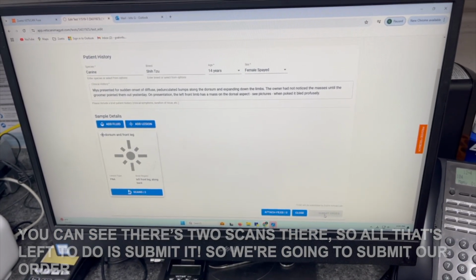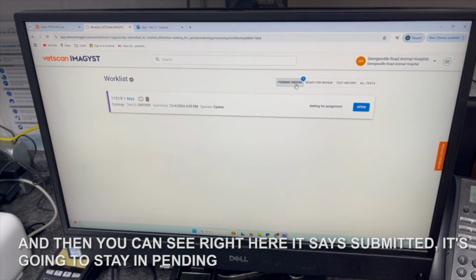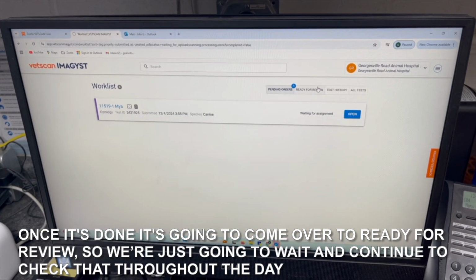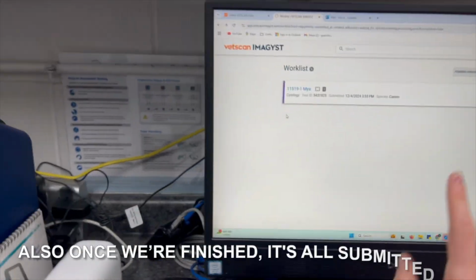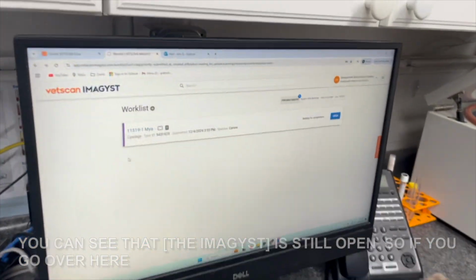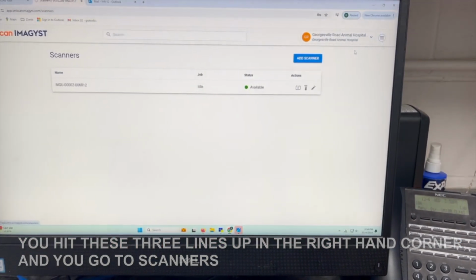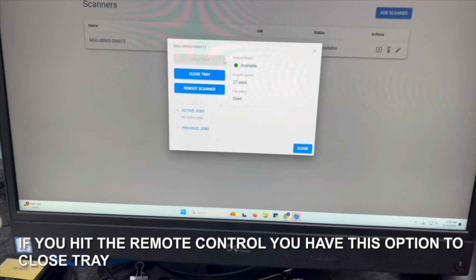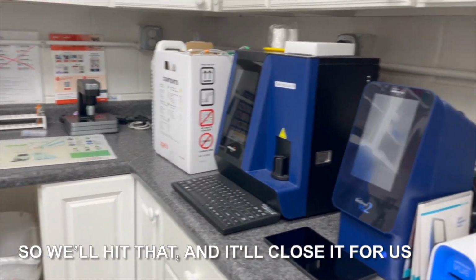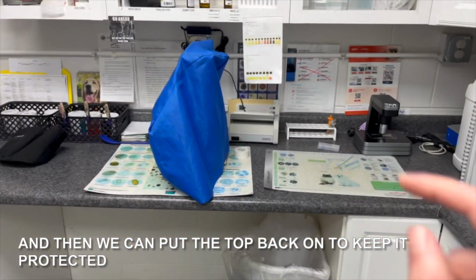So we're gonna submit our order. And then you can see right here, it says submitted. It's gonna stay in pending. Once it's done, it's gonna come over to ready for review. So we're just gonna wait and continue to check that throughout the day. Also, once we're finished, it's all submitted. You can see that it's still open. So if you go over here, you hit these 3 lines up in the right-hand corner and you go to scanners. If you hit the remote control, you have this option to close tray. So we'll hit that and it'll close it for us, and then we can put the top back on to keep it protected.